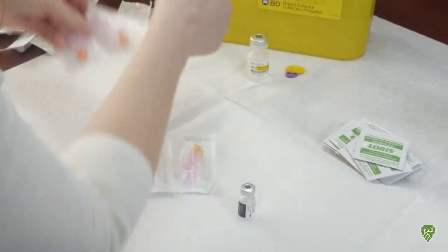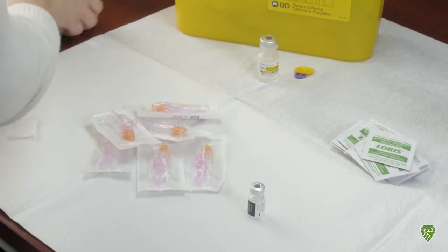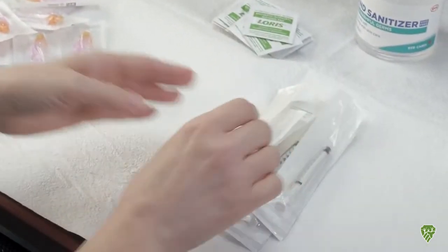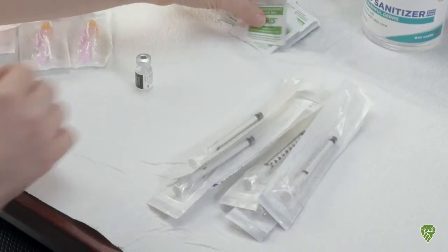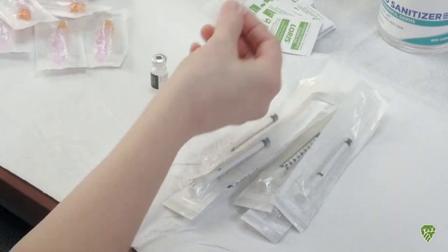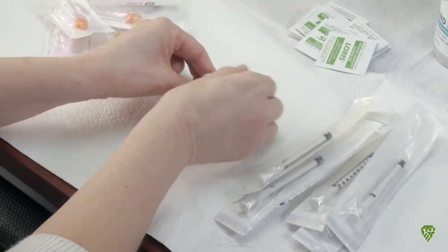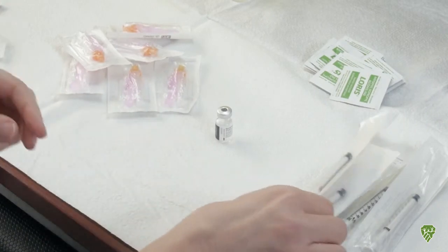So I've got six needles, six one-milliliter syringes. I'm going to start by wiping the top of the vial again for every dose that's pulled and letting that dry.